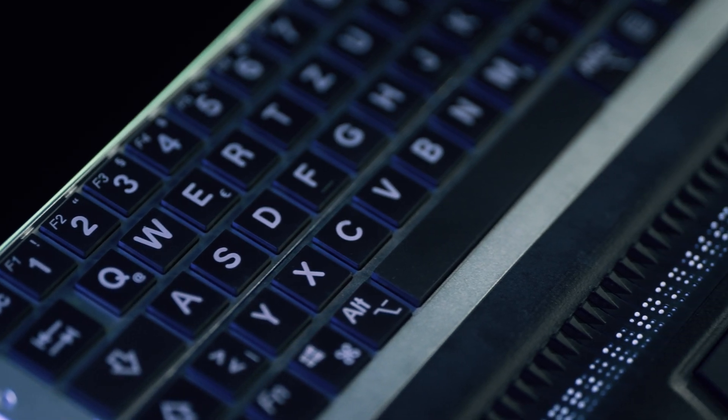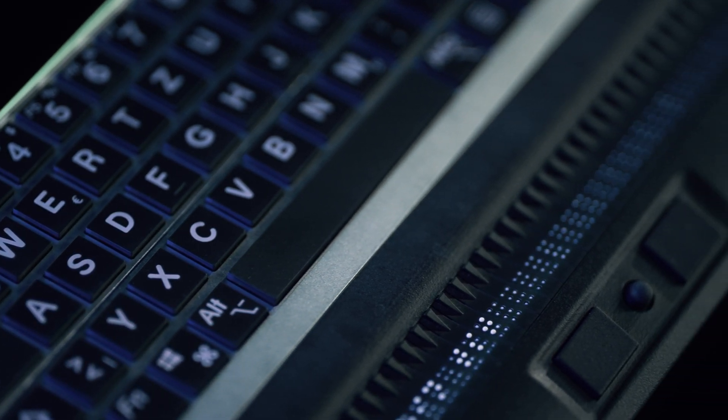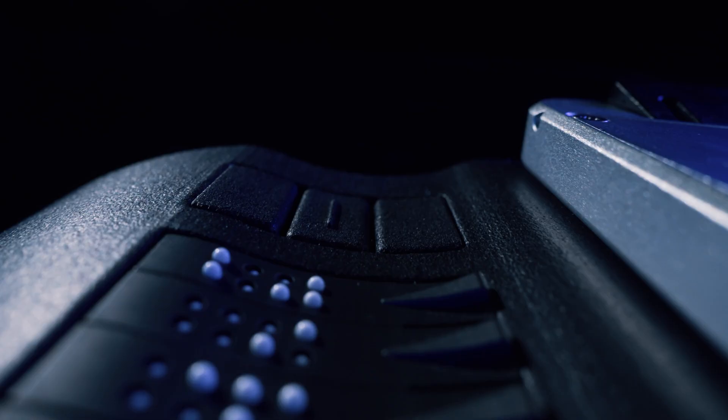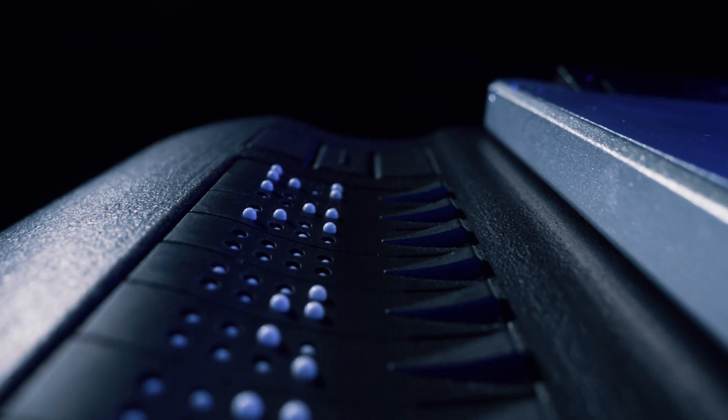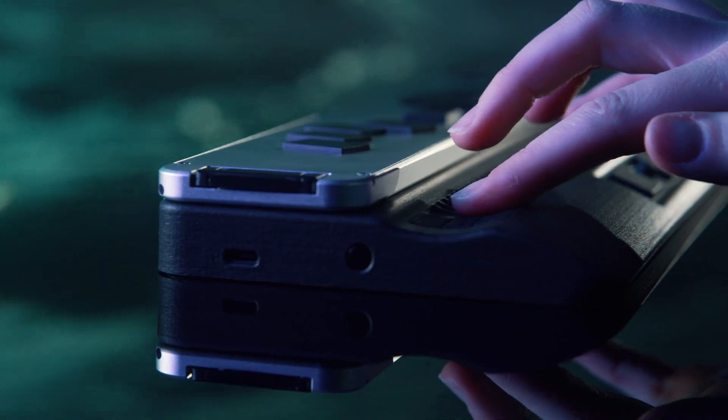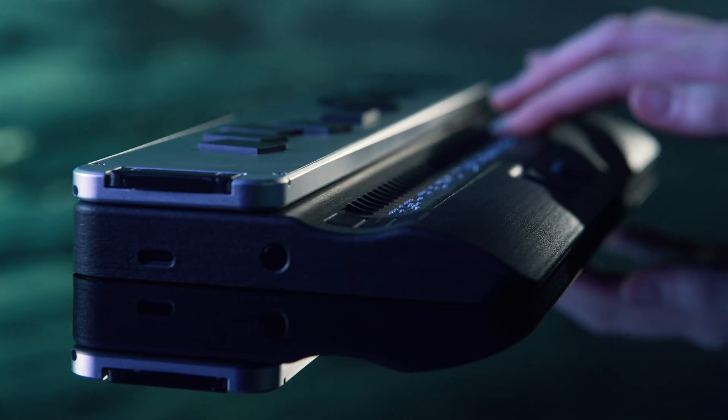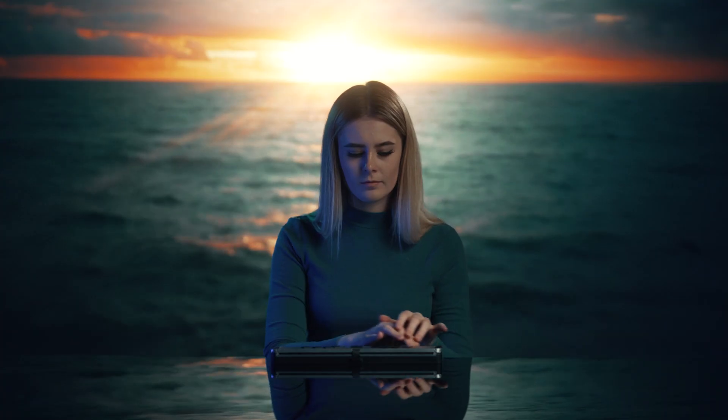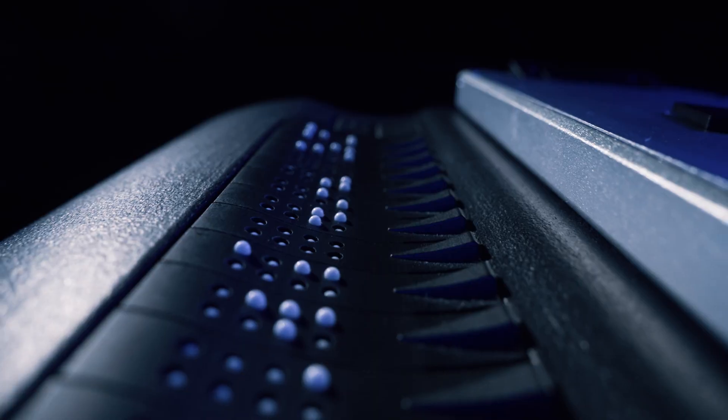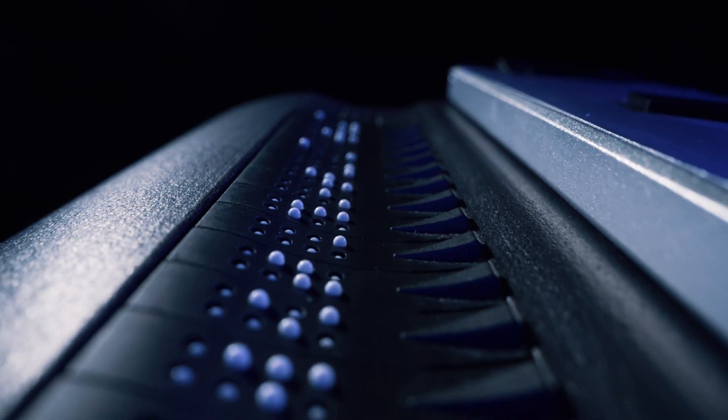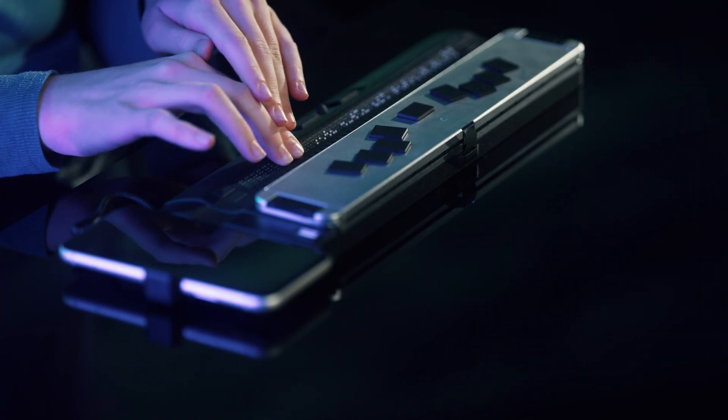Perfect for school, university, or everyday work. Enjoy pure reading pleasure by automatic scrolling via ATC technology. A smart device with built-in organizer functions.